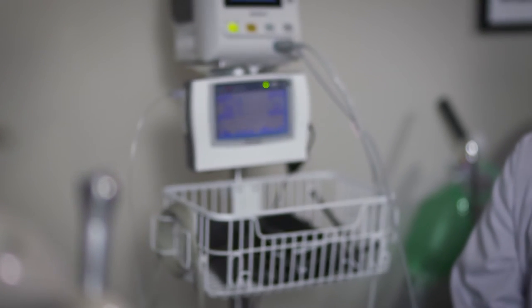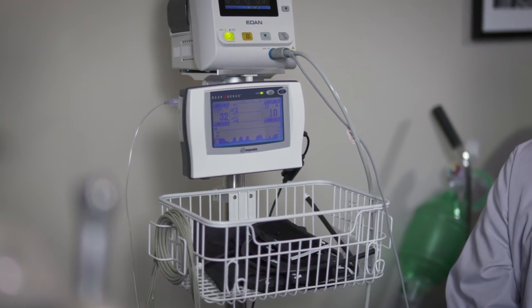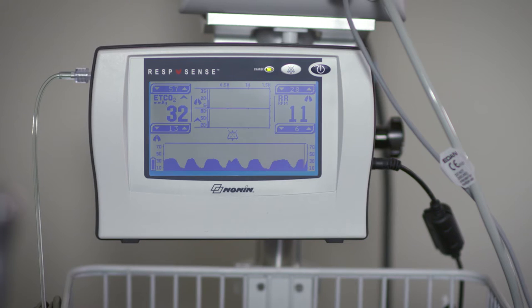The American Dental Association recently revised its guidelines recommending the use of capnography for moderately sedated patients. While this is a new recommendation by the ADA, I have been using capnography in my practice for several years.